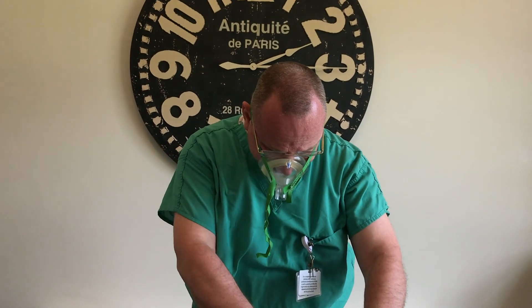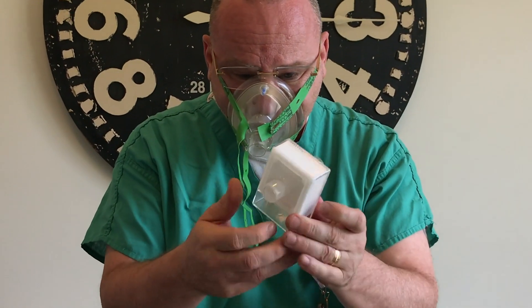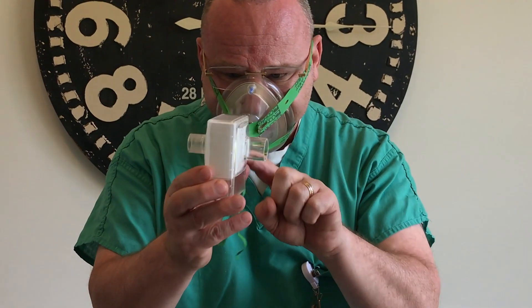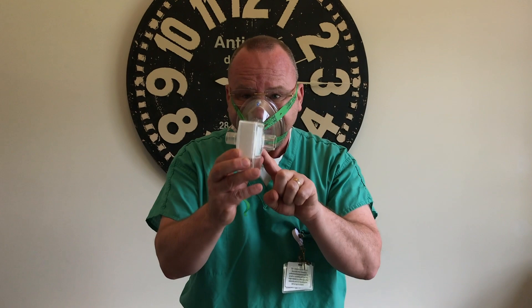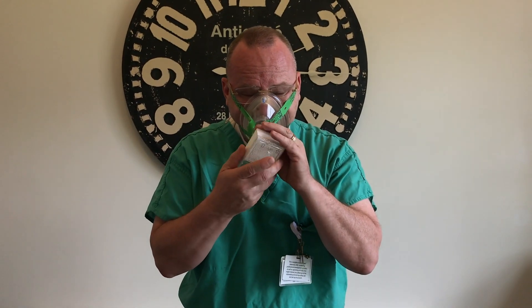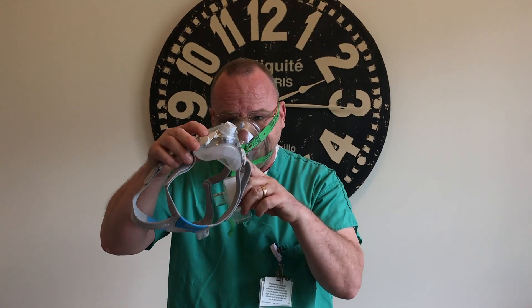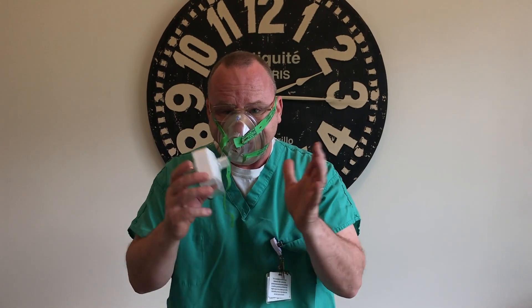Now you have different versions of filters that you can use. We'll go with this one that we talked about yesterday when we did the other video. This is our ventilator filter. You can hook it right up directly to the mask and now it's working. Hard to hear my voice but it works really, really well with the breathing. This is not nearly as secure or as comfortable as our CPAP mask from yesterday, but in a pinch when you need it, this will work.